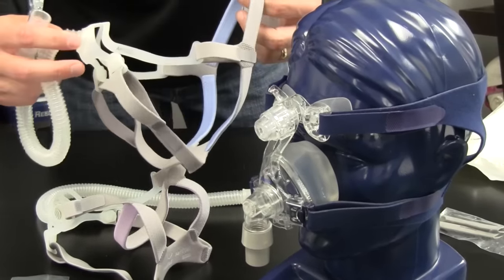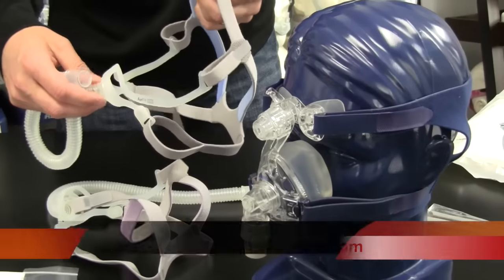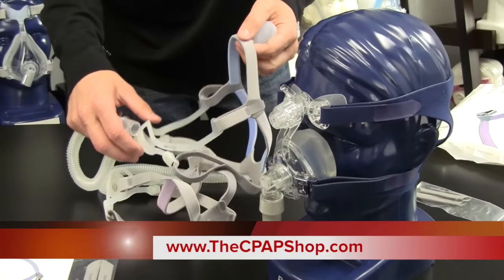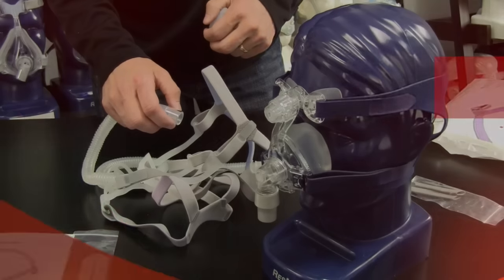So this new ResMed AirFit N10 nasal mask is available on our website, along with every other CPAP supply product. You can reach us at www.thecpapshop.com. Thank you.